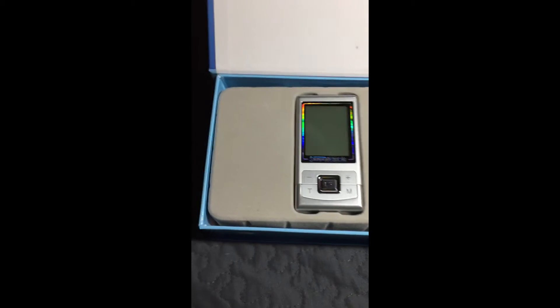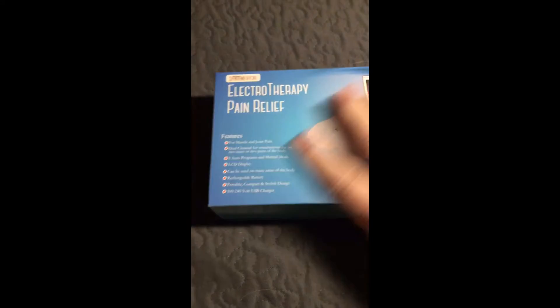It's really good quality. I've used others from this brand and I really, really do like them a lot. I have fibromyalgia, so for me this is a great tool for that. I do highly recommend it — it works wonderfully and the different settings are just amazing.